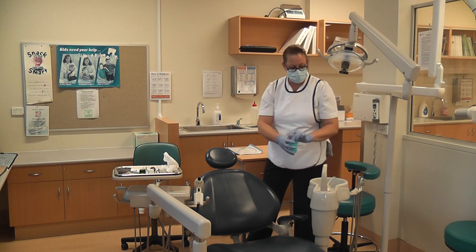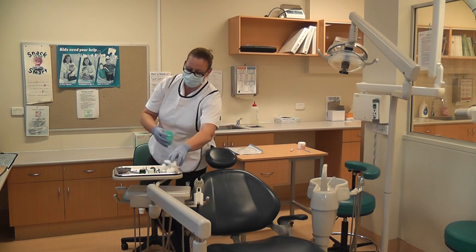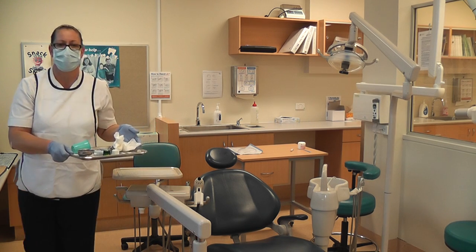What we do now is remove the remainder, just check to make sure that the little area inside the spittoon is not full of debris, and do one last check to make sure we haven't forgotten anything before we take it off to the sterilising area.